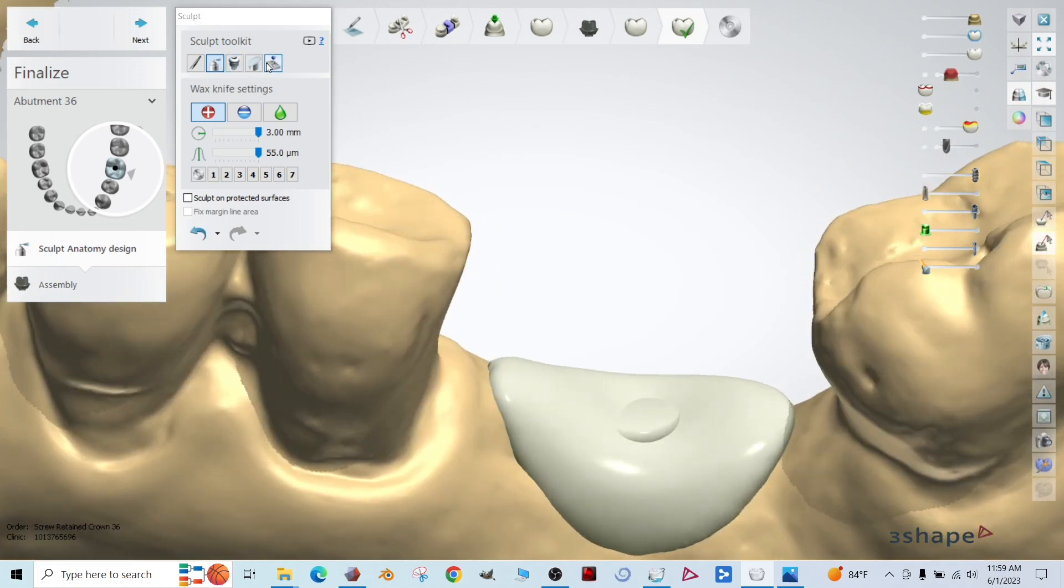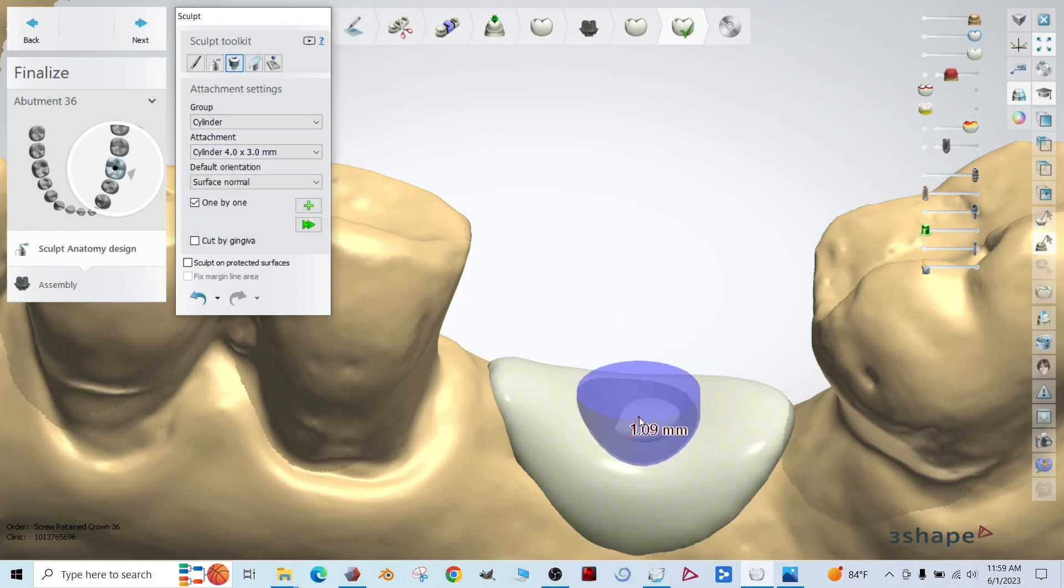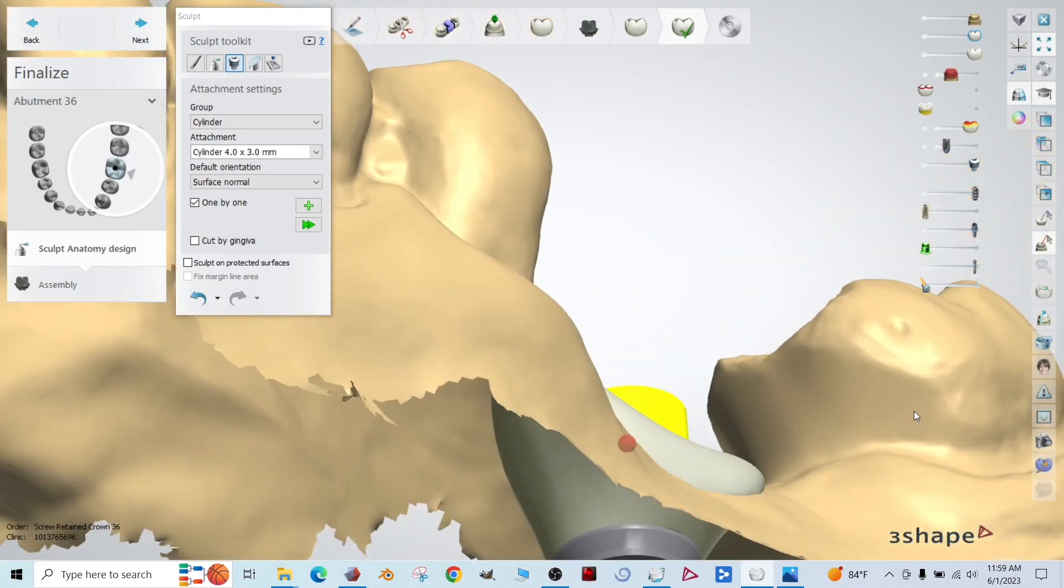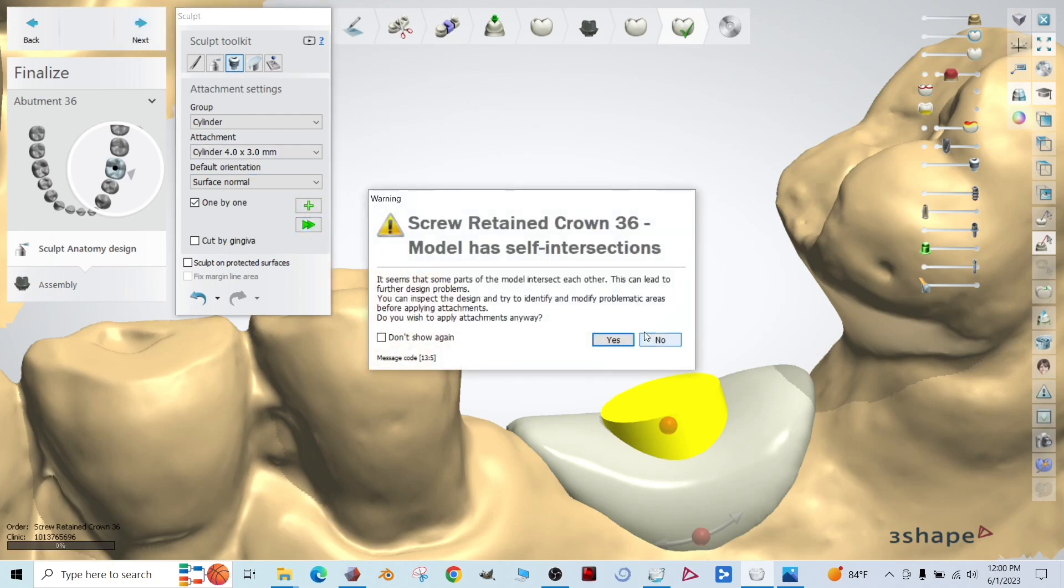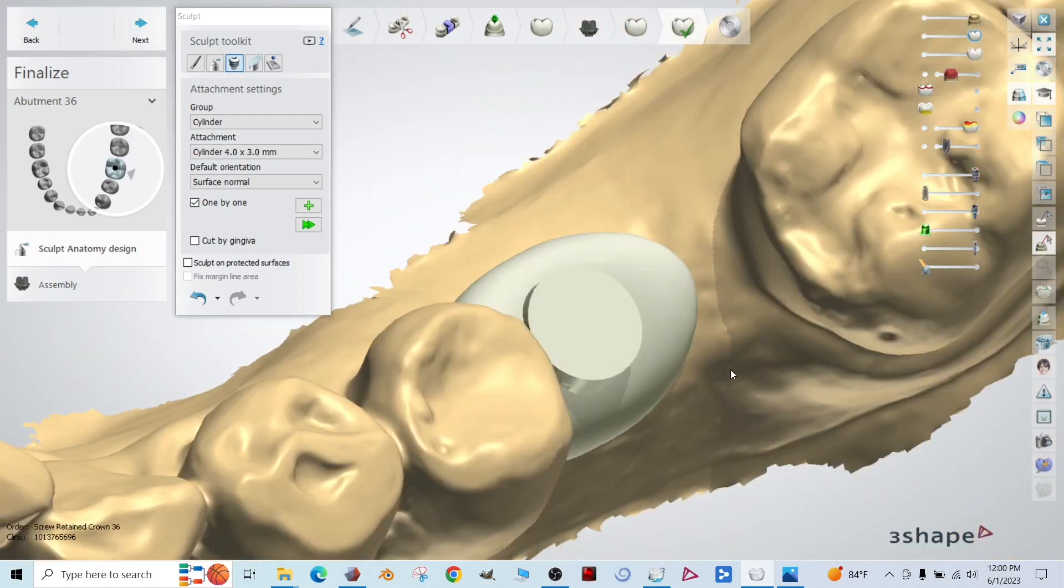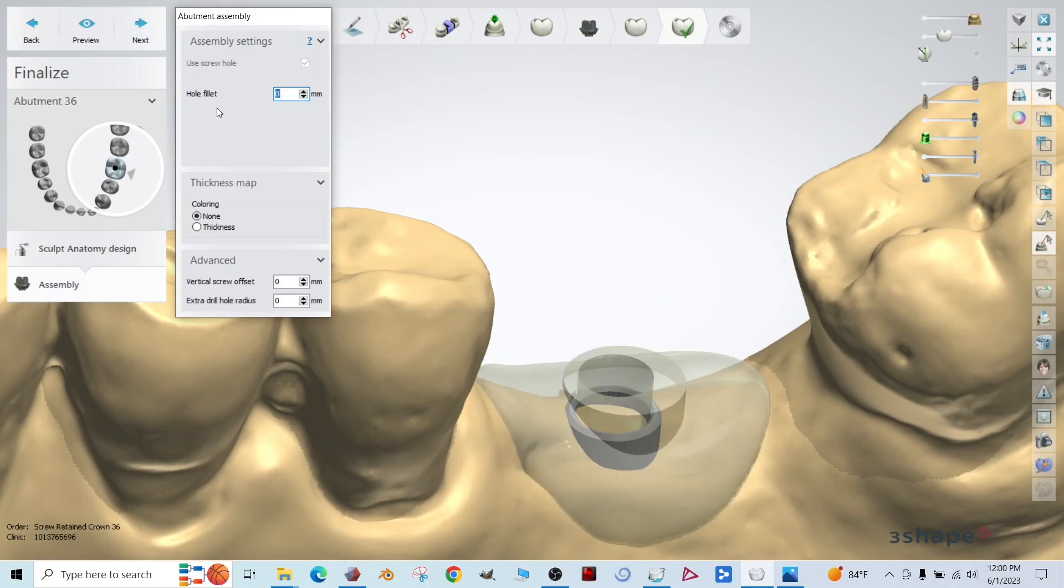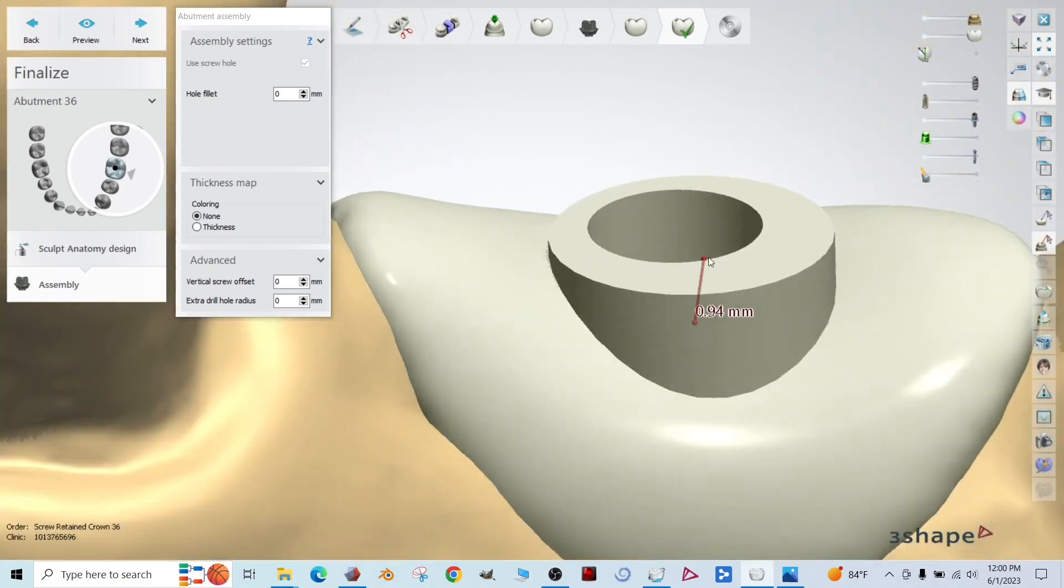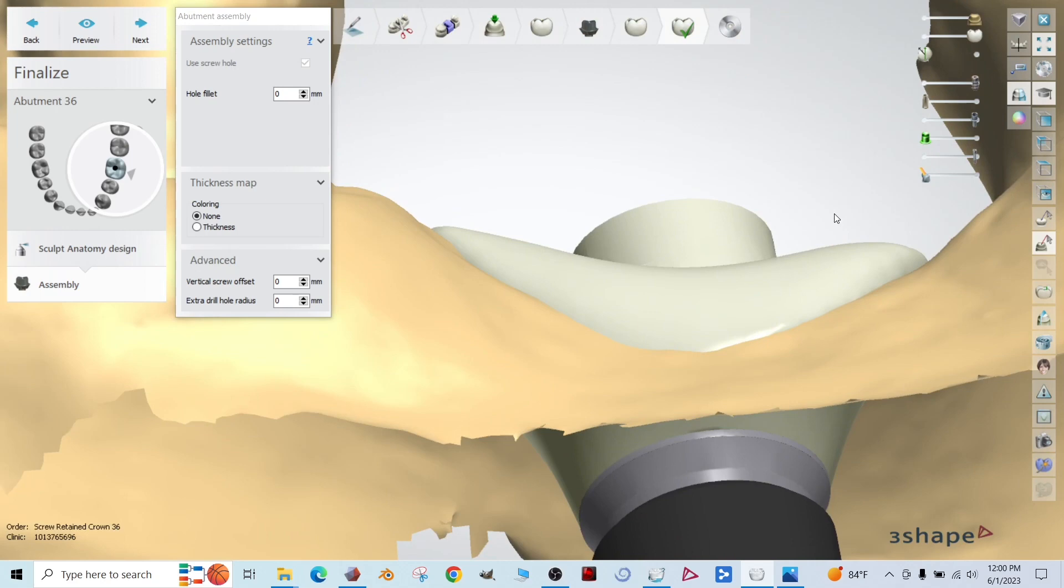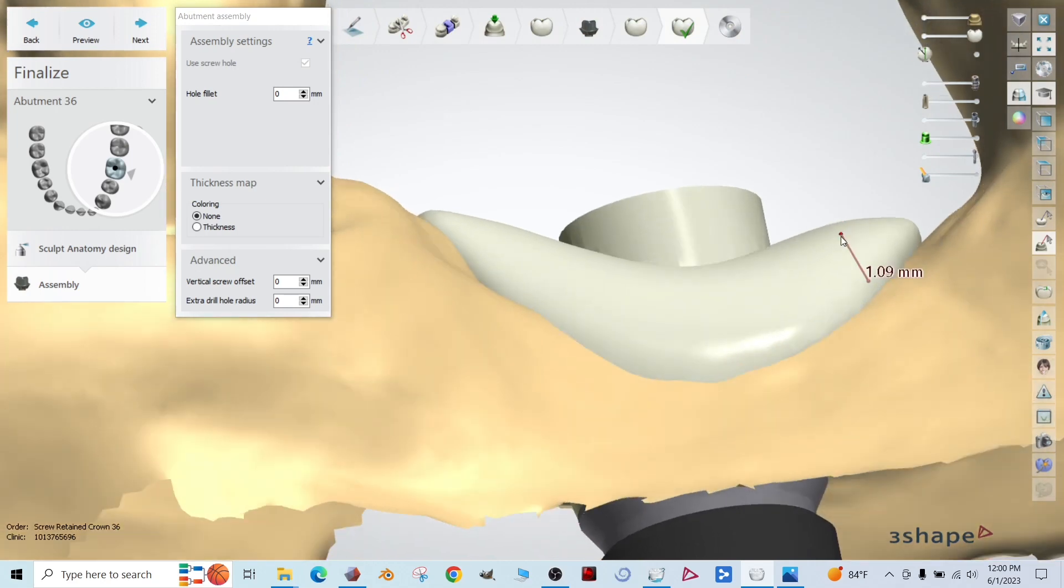So let's just say we want it there. In this attachment kit here, there's cylinders and we can attach a small cylinder to this area. That way it's covered. And then we'll just plan on grinding that away during post processing after we've 3D printed it. Okay. Okay. There we go. Attachments on click next. All right. Again, this bleb up top here, we'll plan on grinding that away after we've 3D printed the healing abutment and bonded it to the tie base.